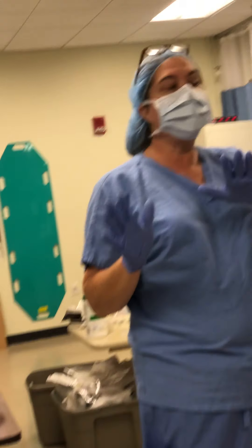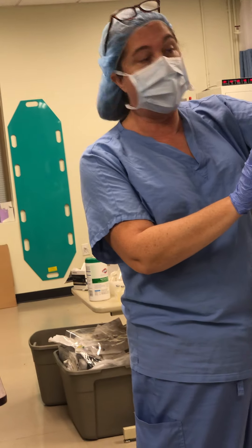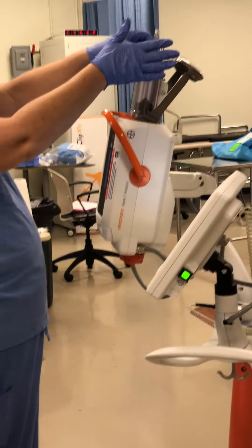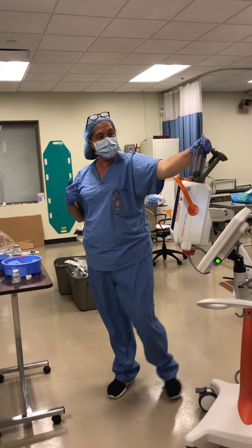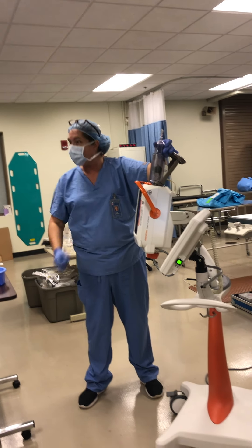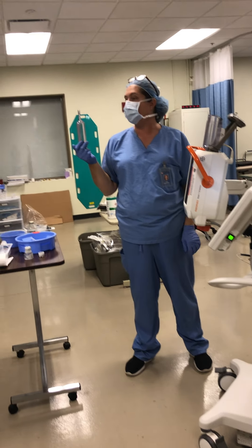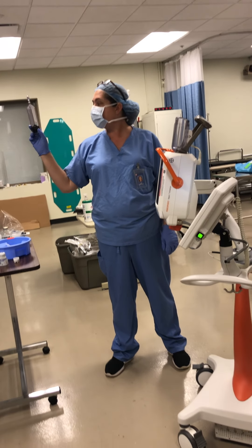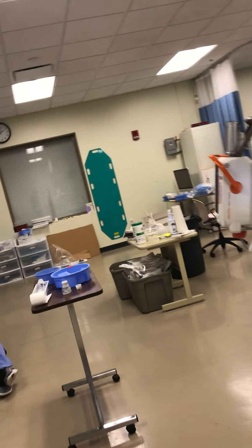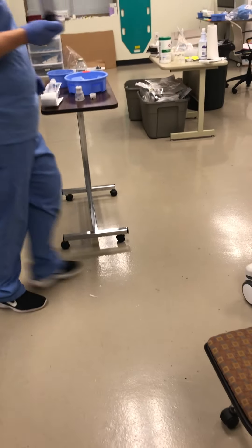Because we have a little bit of fluid, I just have to get that fluid out, and you just have to kind of do that for us to be ready to practice again.